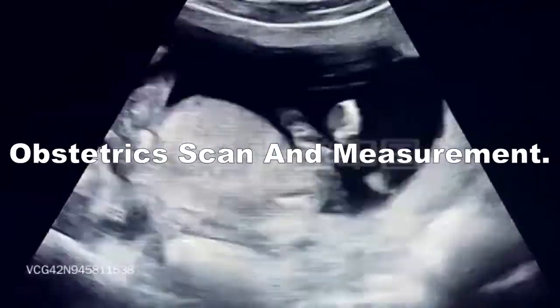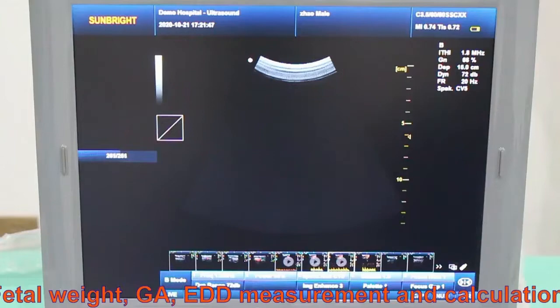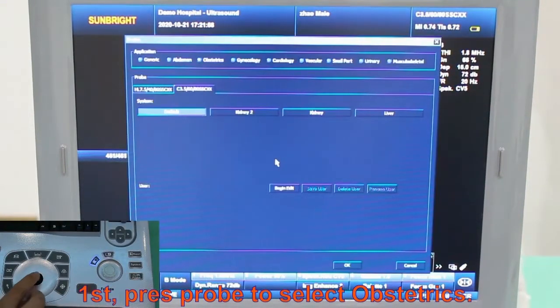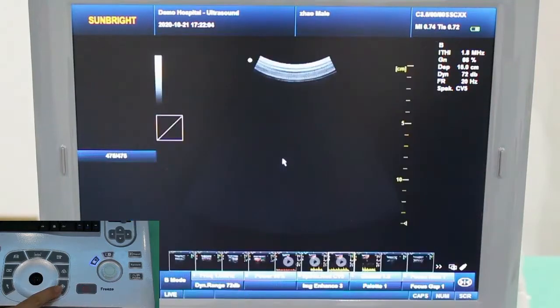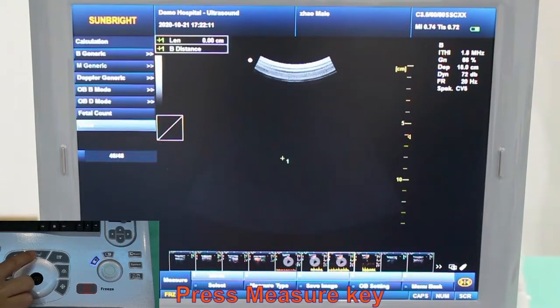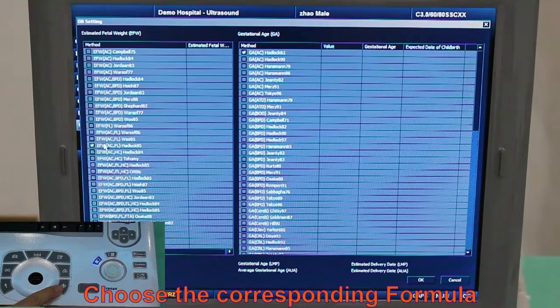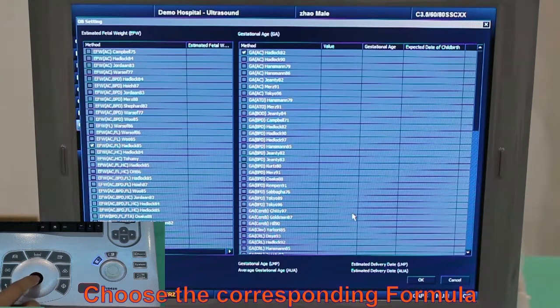Obstetric scan and measurement. How to measure fetal weight, GA, and EDD: Press the probe, choose Obstetrix, and press OK. Press Image, then press Measure. Press P4 to choose OB setting. Choose the formula for EFW such as ACFL, and choose the formula for GA such as AC. Press OK.